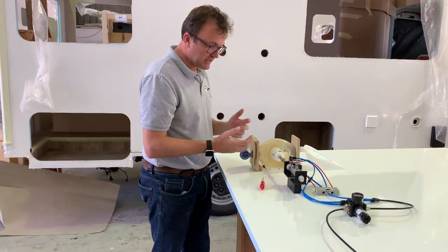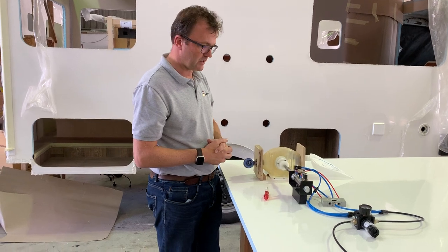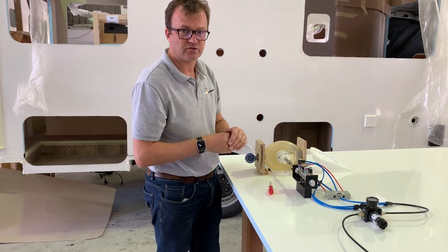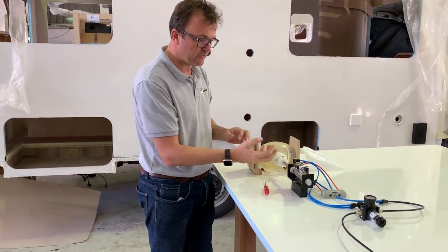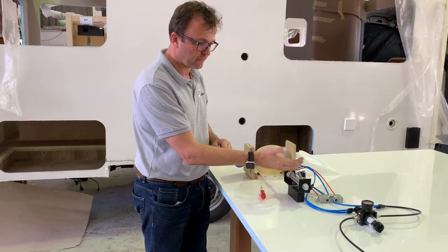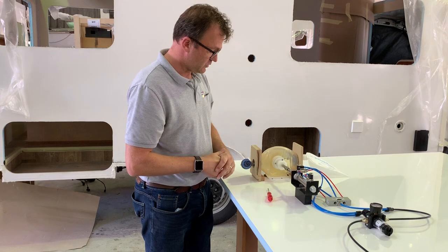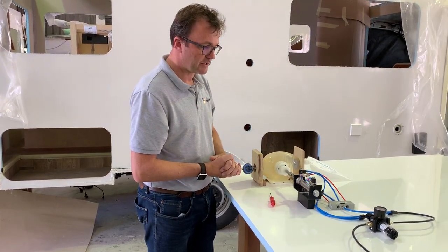Yes, please, any input is necessary, is welcome to us. So we are able to develop this. Today is the 26th of March, and we were told that we can have 200 systems available from a supplier within a week, week and a half. So it's not much, but it's something.